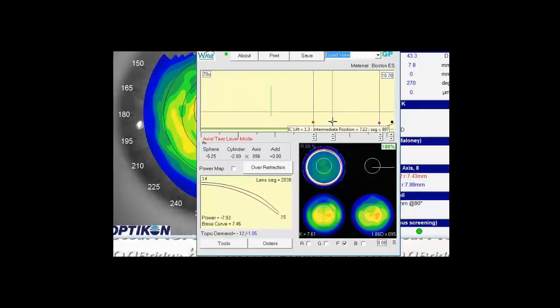all we need to do is either grab and drag the blue dot down or click the blue dot down. And you see as we do that, it will raise the apex of the contact lens slightly and align the periphery. We can drag it more or less depending on what you see at the slit lamp and what you see as would be helpful for the contact lens.